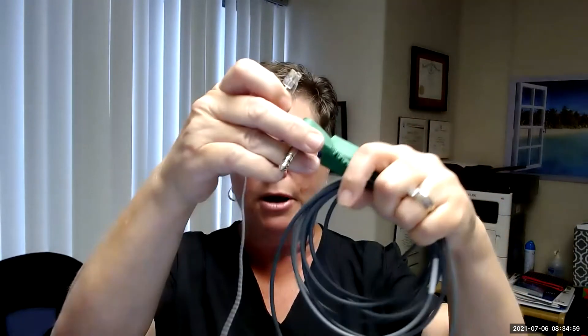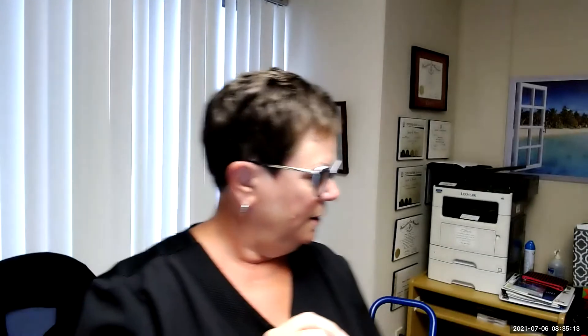That has an end on it that will plug in to the green cable. So this part goes into the machine. This is where you will connect the surface temperature. The probe for the Foley catheter is just the same as the one that we're used to using.